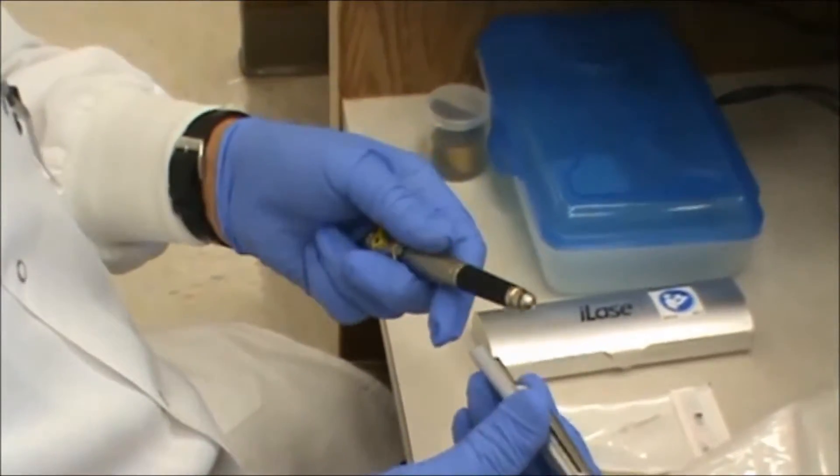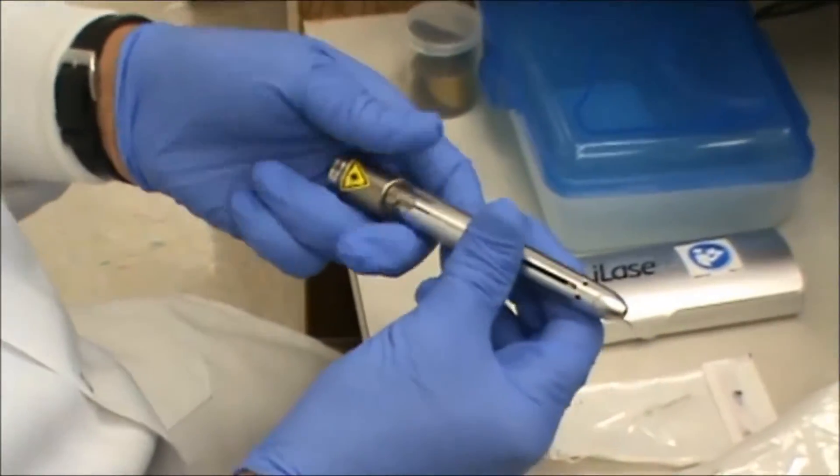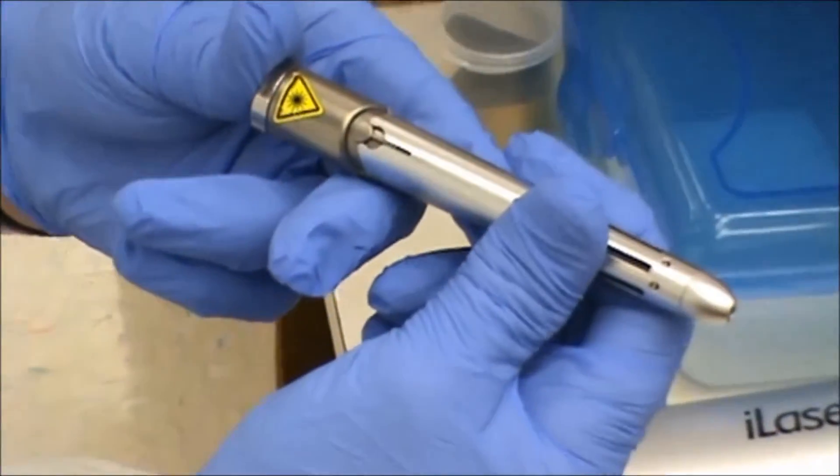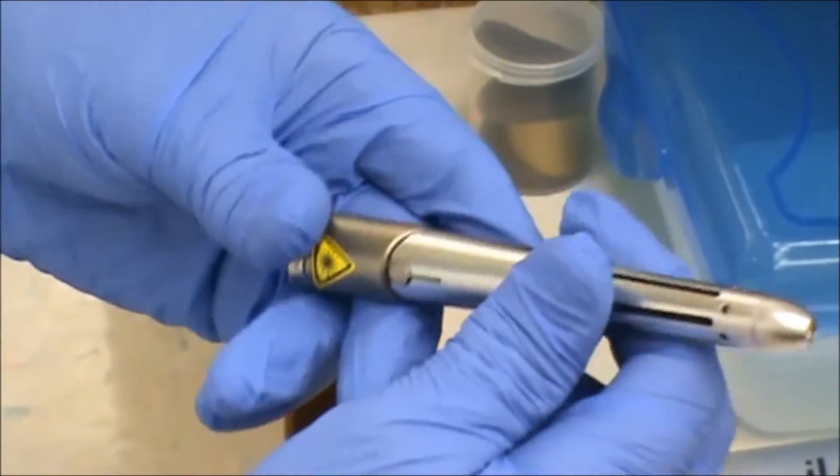I'm going to place the shroud on the laser that indexes on this key in the back, click it into place.